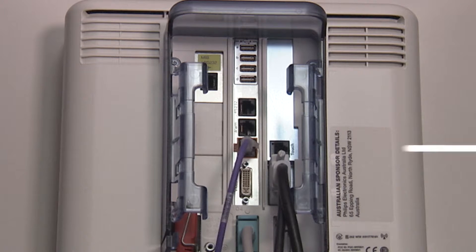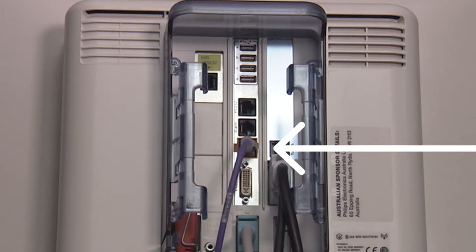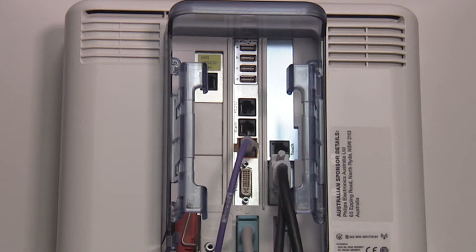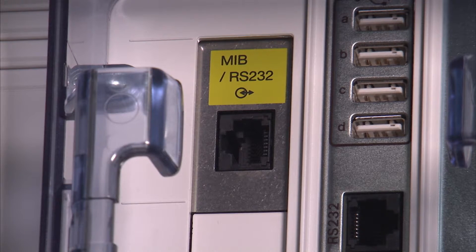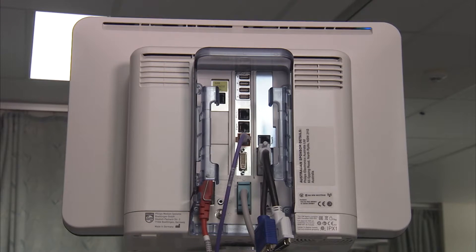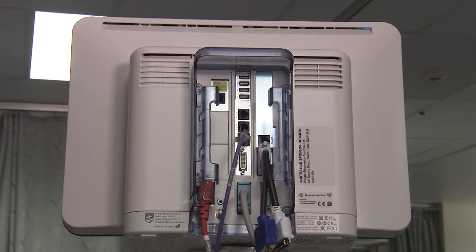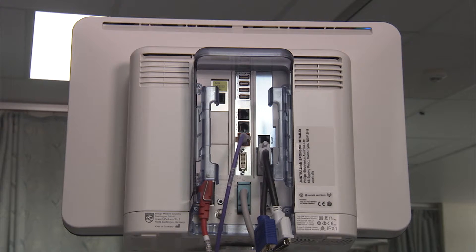As you can see, this is the correct location of the Philips network cable. Please note, no cable is in the yellow port — the exception being the ADUs in theatre E2 and E3 for perfusion device purposes.